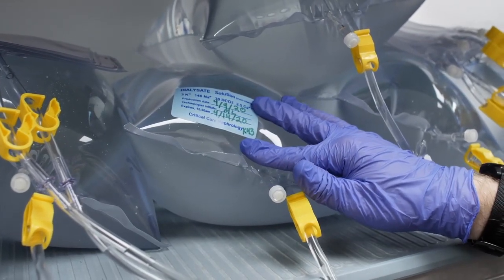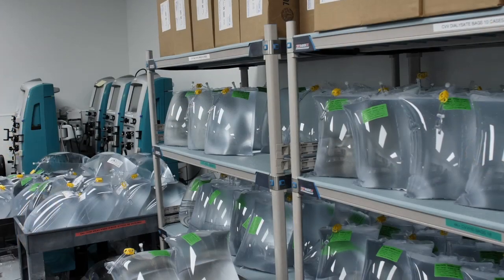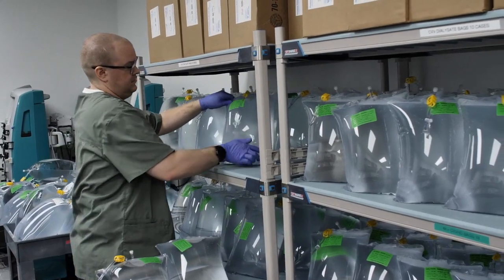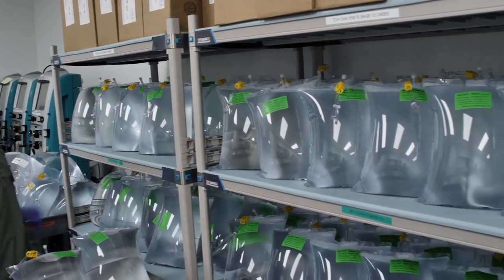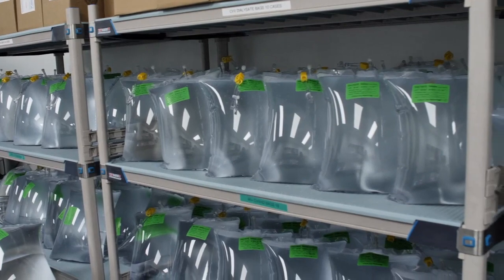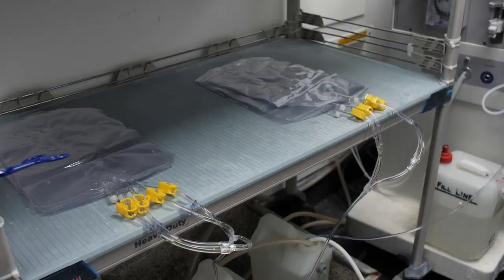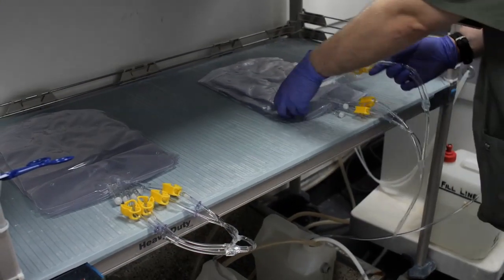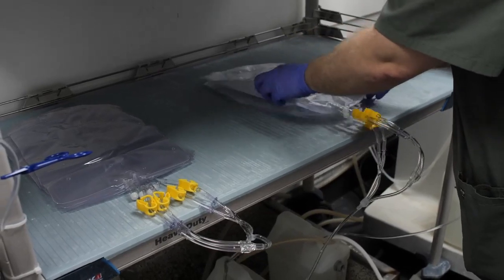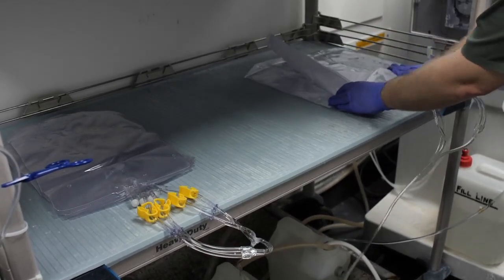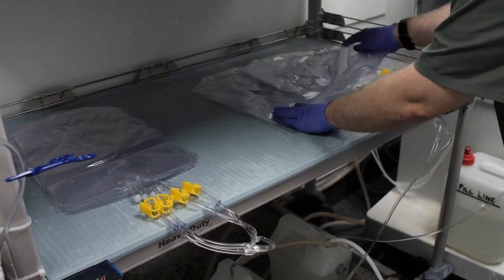Step 21: Place the finished bags in the proper storage place. Make sure to rotate stock to ensure older bags are used first. Step 22: Spread the newly filled connected bags out so they fill equally.